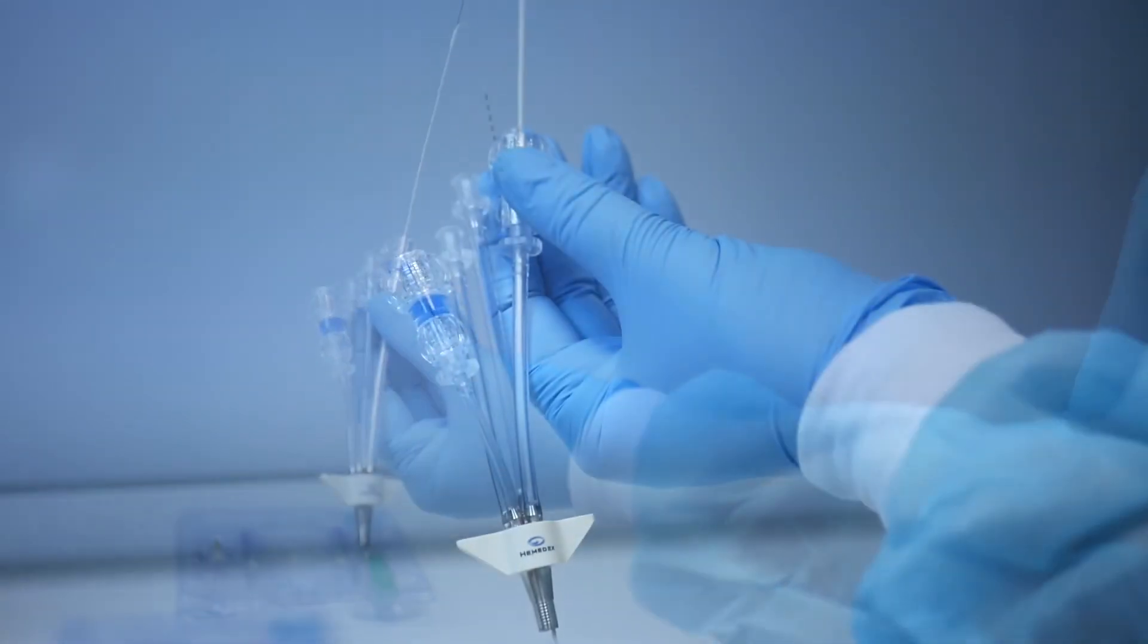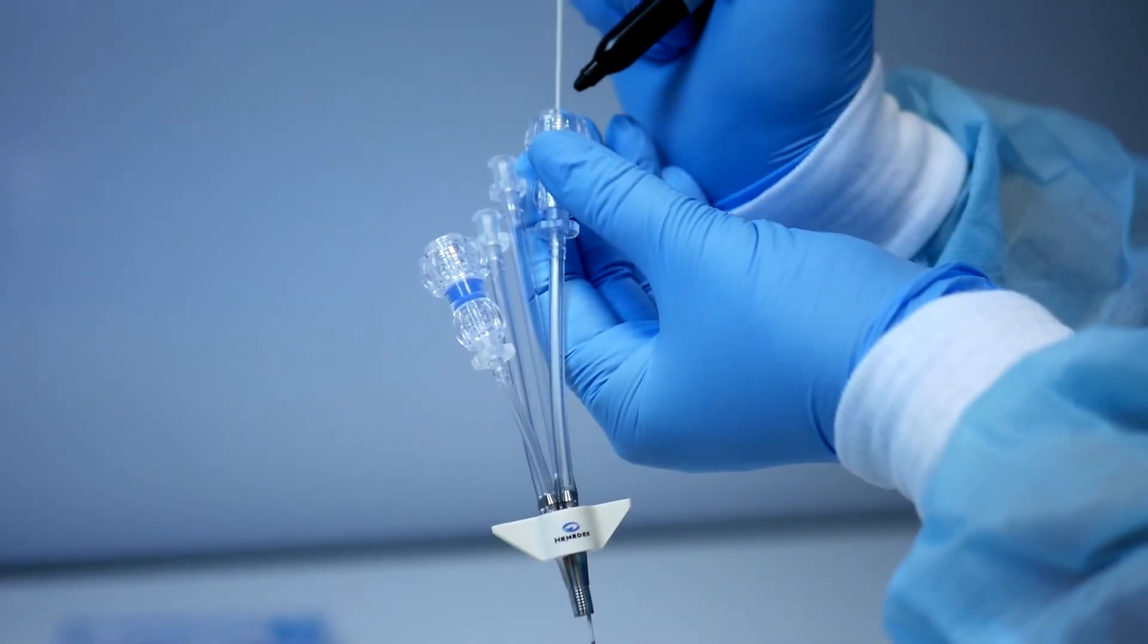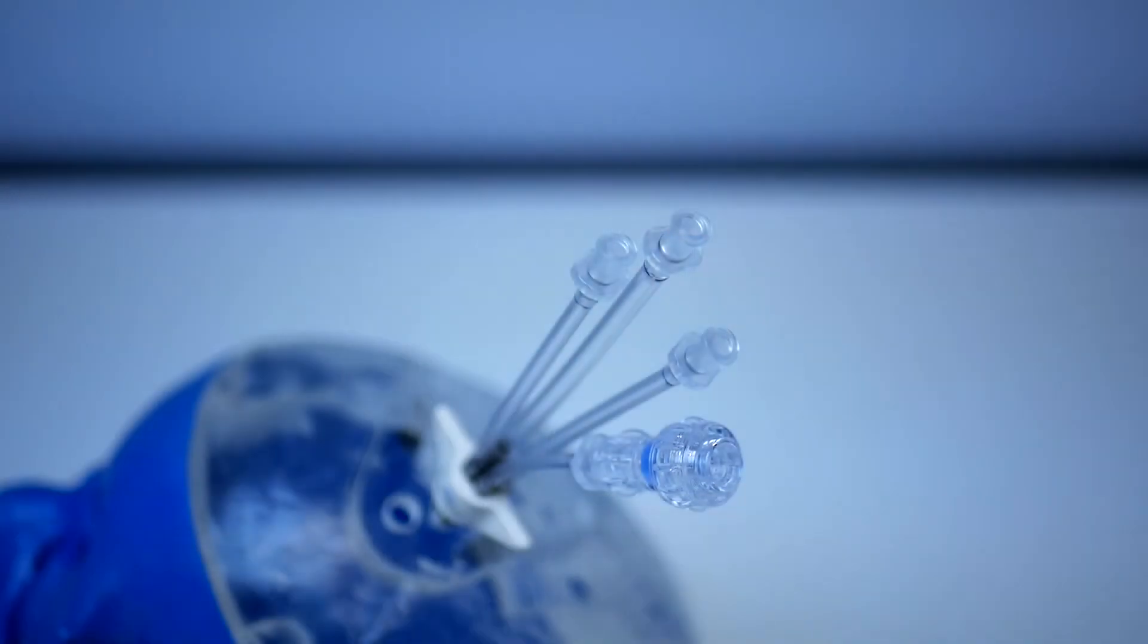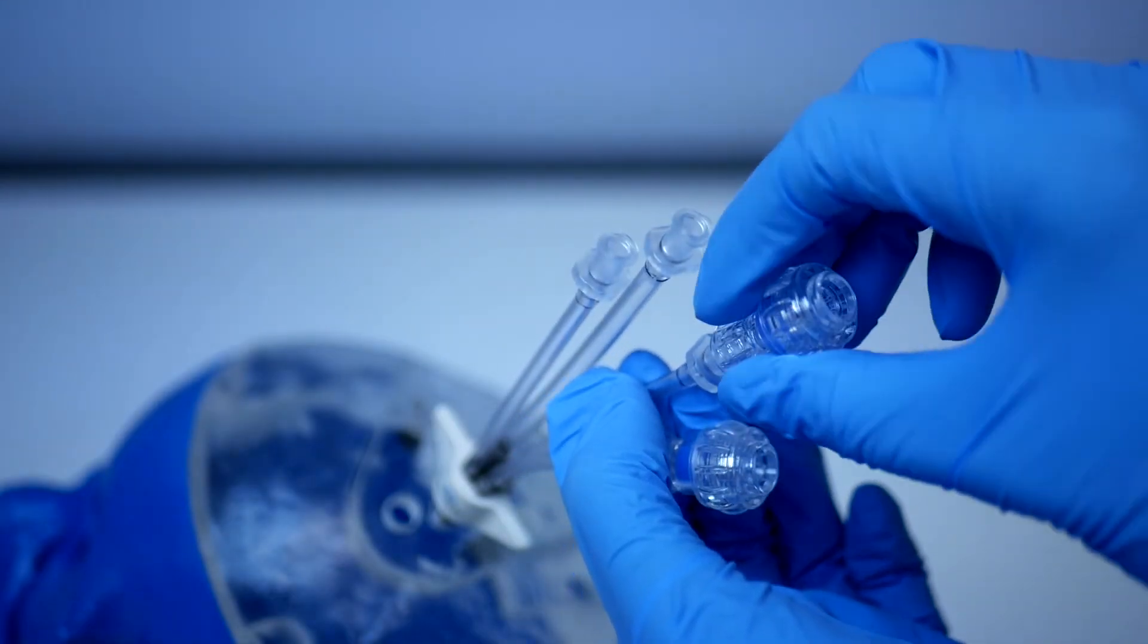For demonstration purposes, we have marked the depth so that the proximal electrode will be in the cortex. Attach a compression fitting to the mid-length pigtail and turn clockwise to secure.